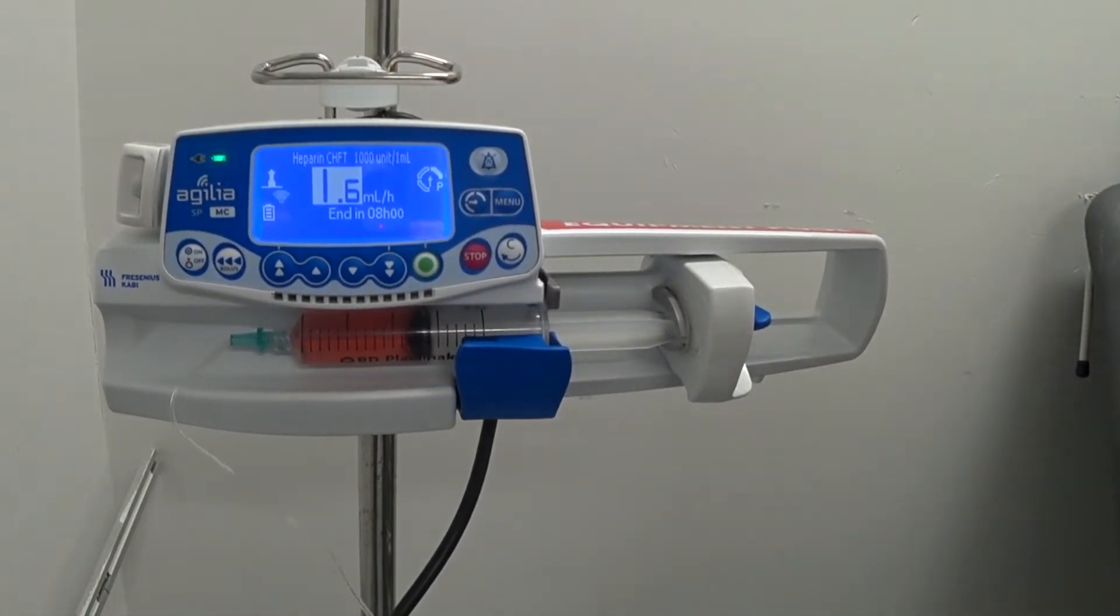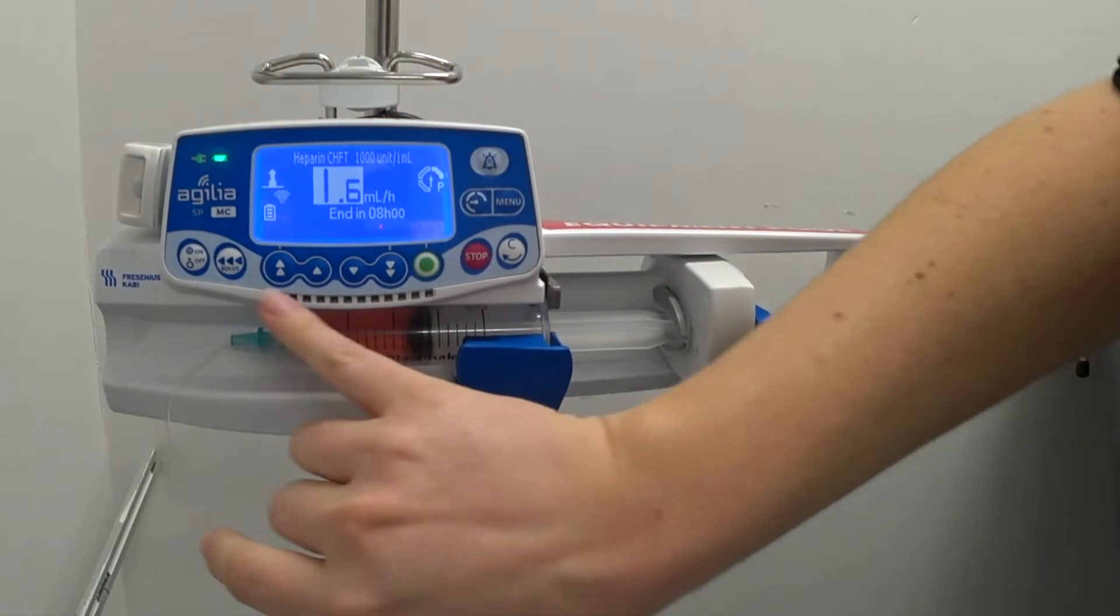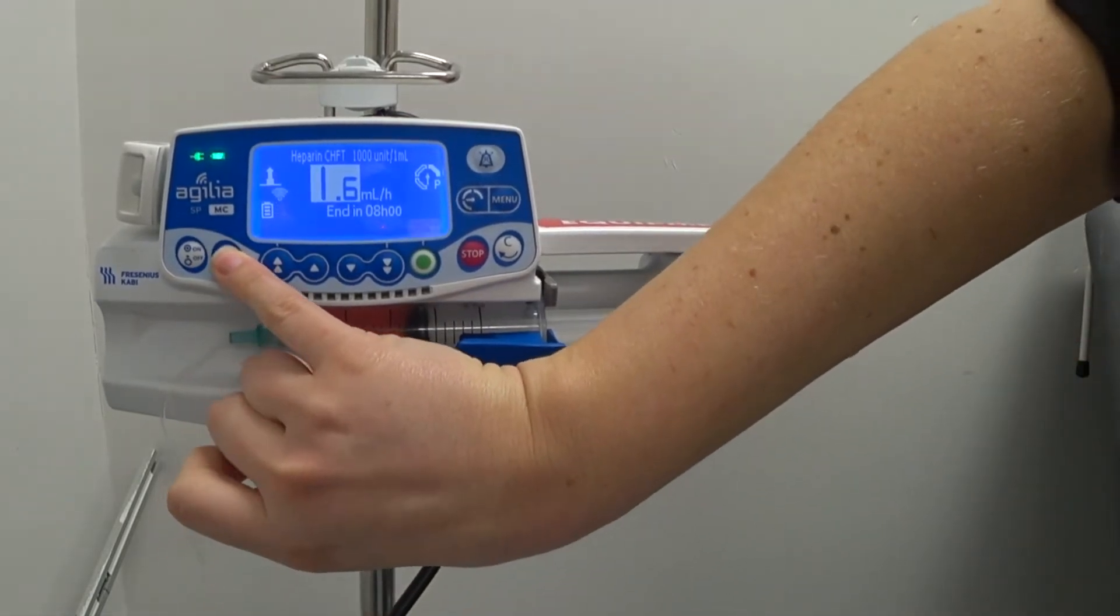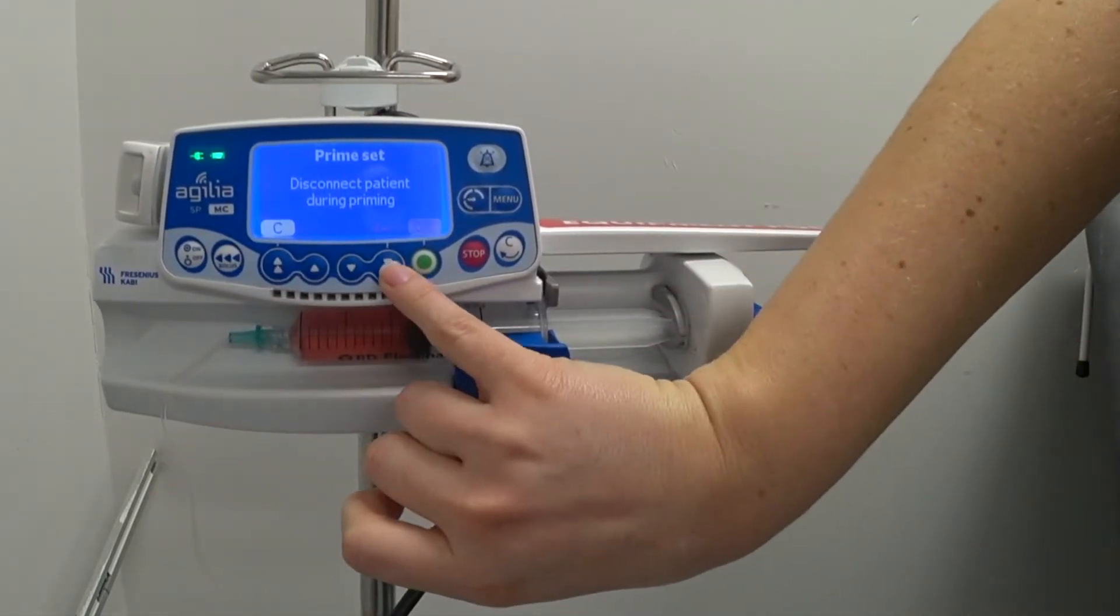Okay, so to purge the line, we hold these three arrows down here for about approximately one mil.